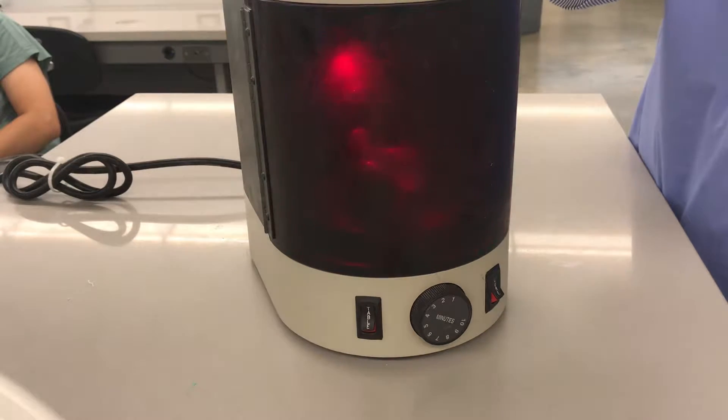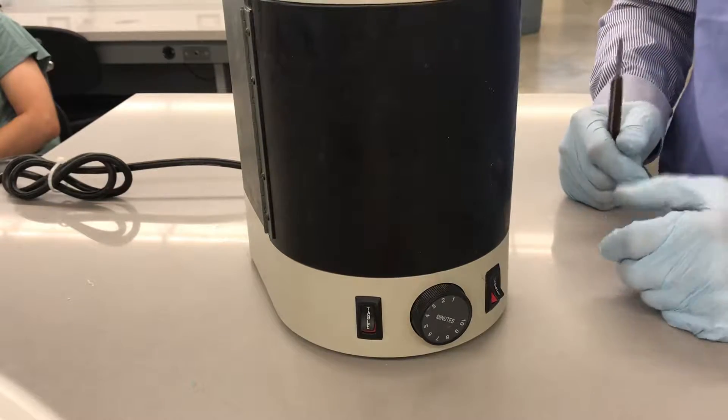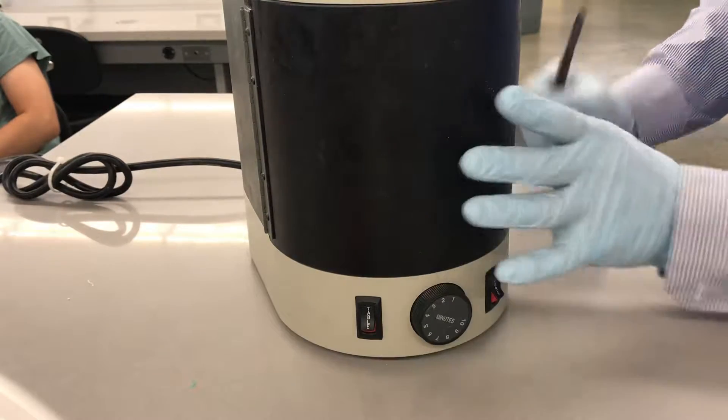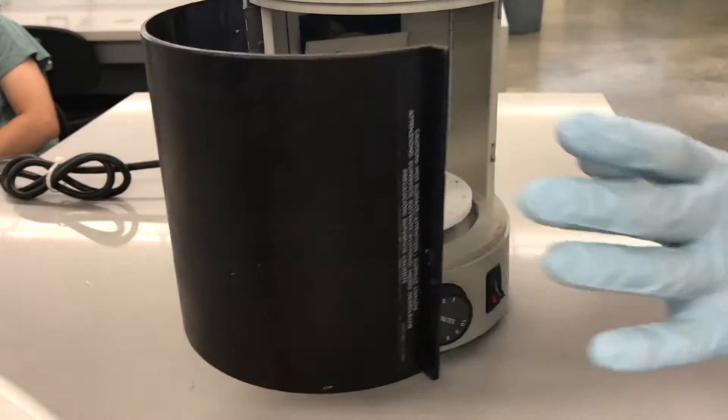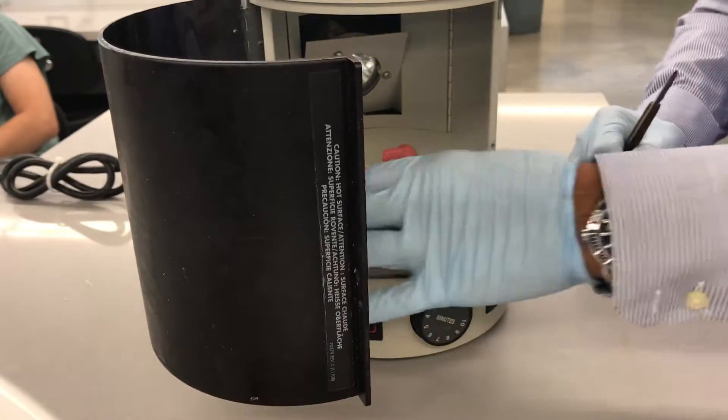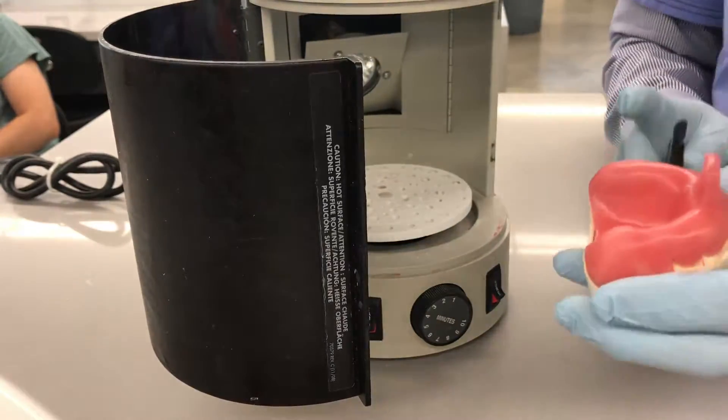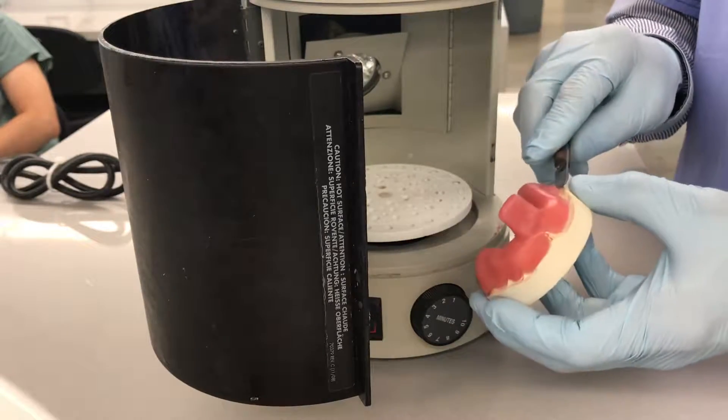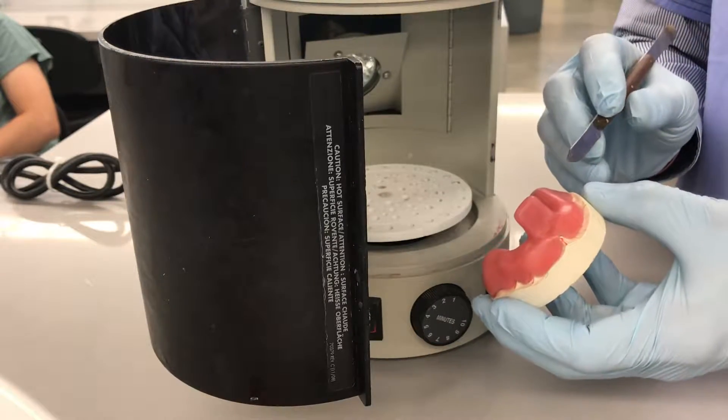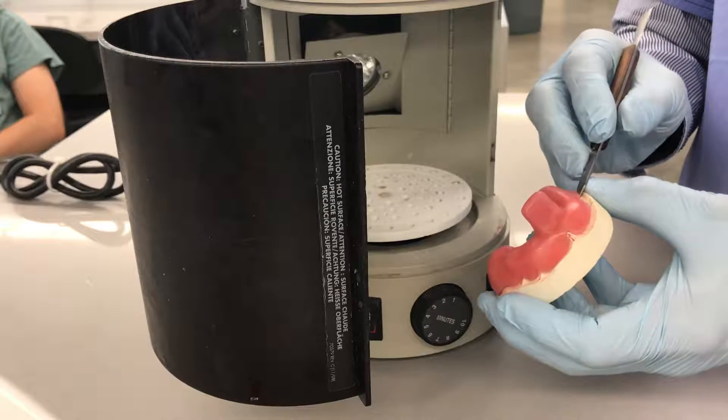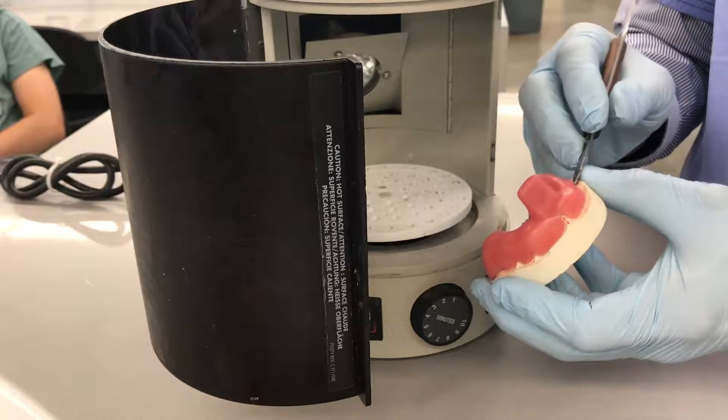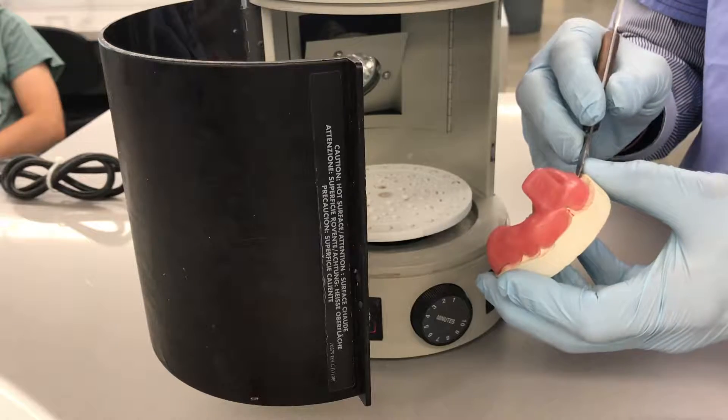So I think it's pretty close to two minutes. Oh, that was pretty close. My internal clock is working still, so that's good. So I'm going to take this out, leave the fan on, remove this, and I'm going to pry. And I'm feeling, as I'm prying, I'm feeling if the edges are cured, and they feel like they're cured.